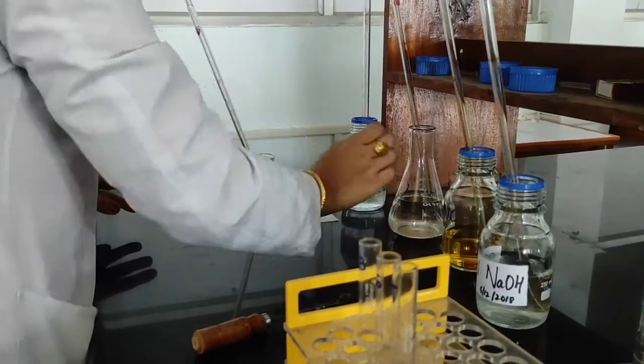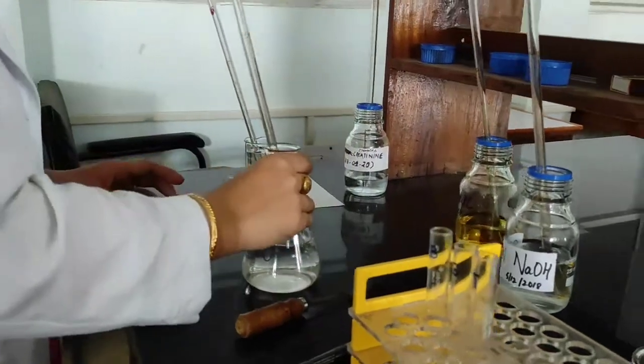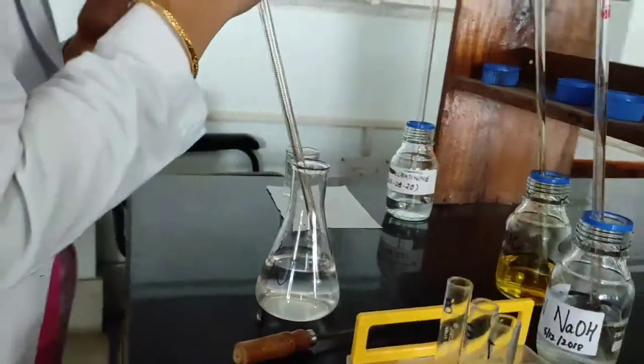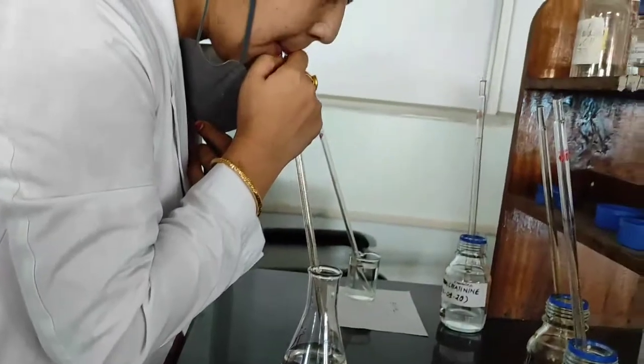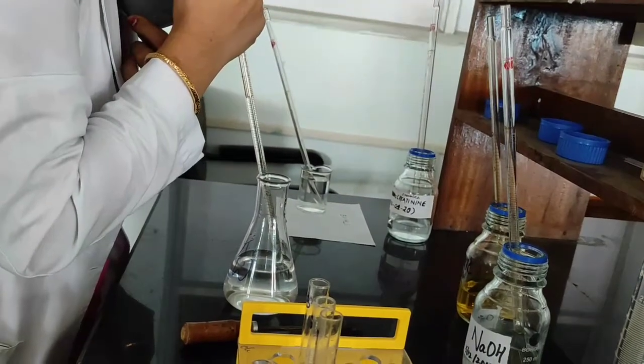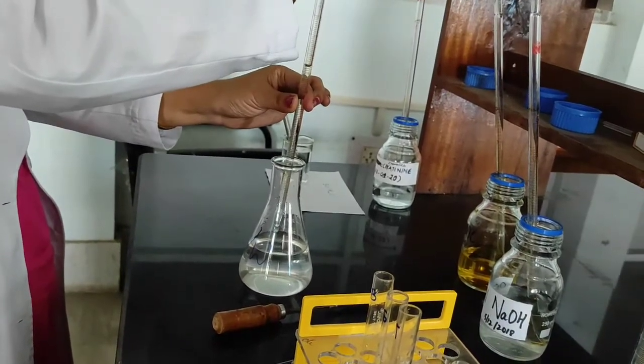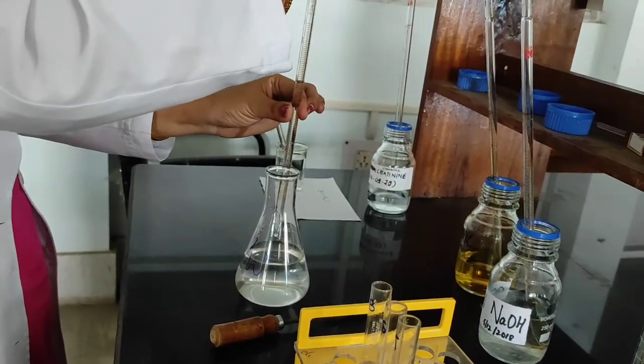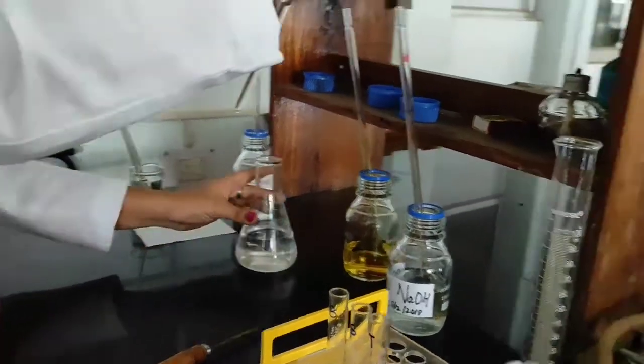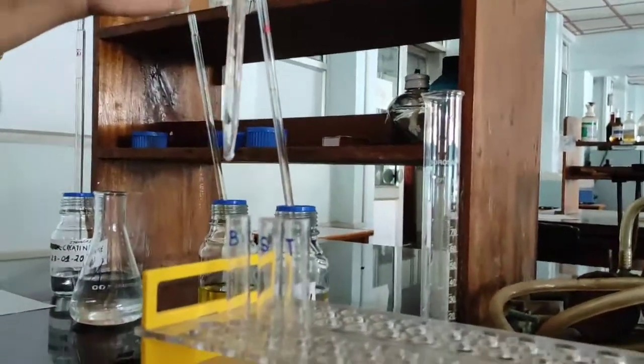And the next one is the distilled water. 3 ml of distilled water in the test tube labeled with B.